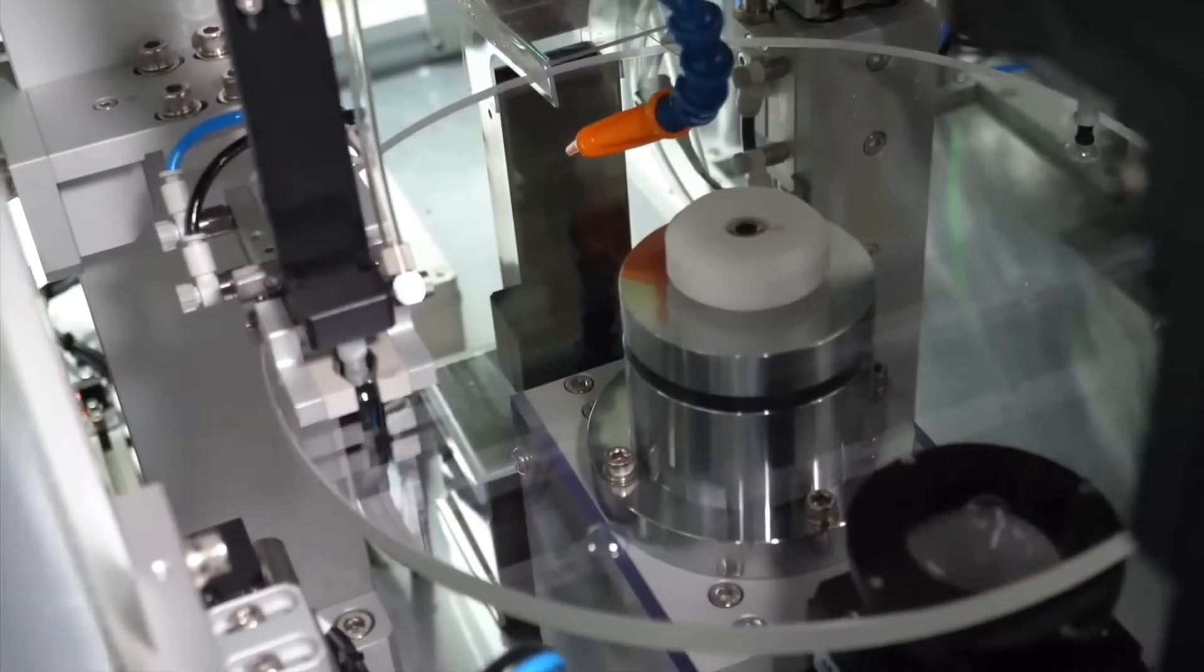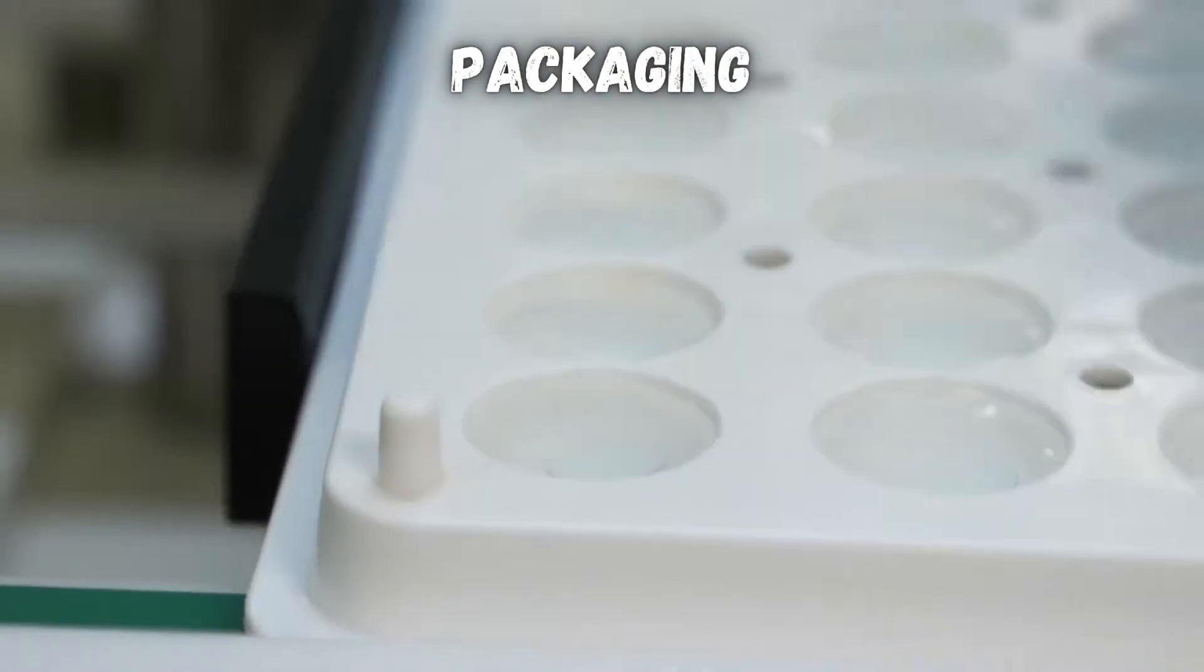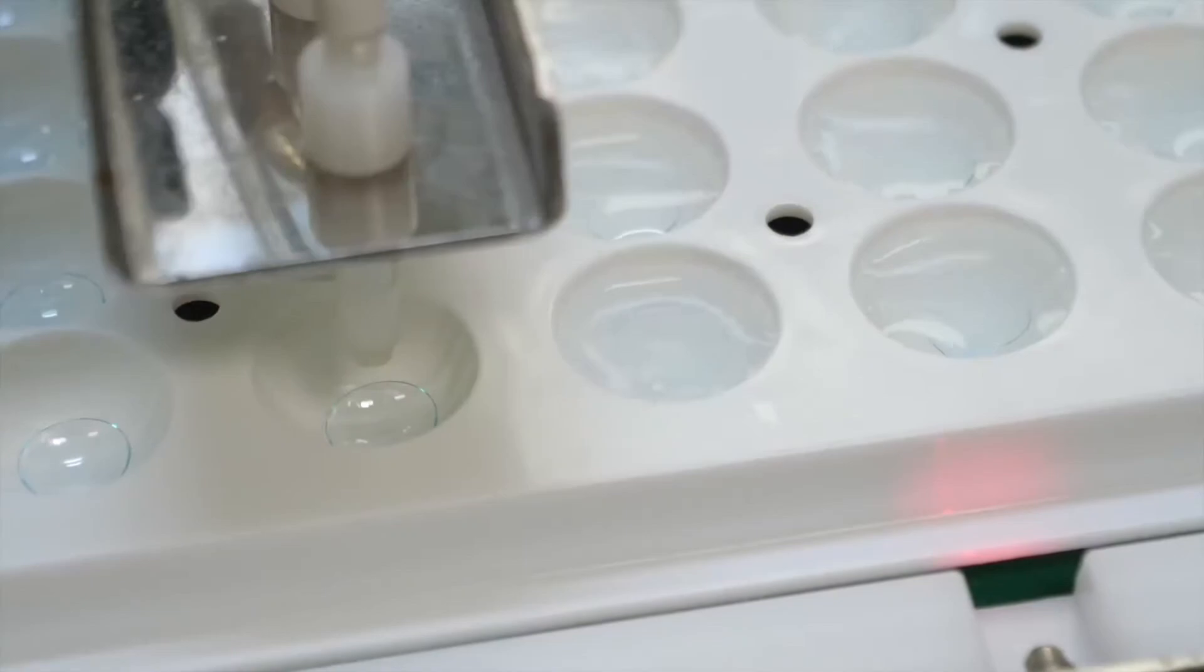Checking the smoothness of edges is really important to make sure that the lenses aren't uncomfortable. And after all of these tests, the contacts are ready for packaging.